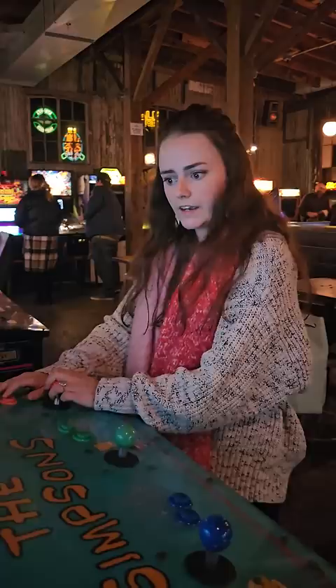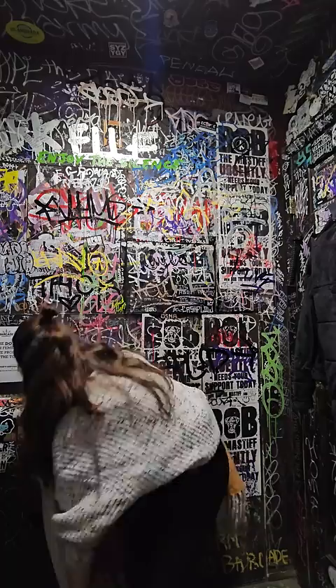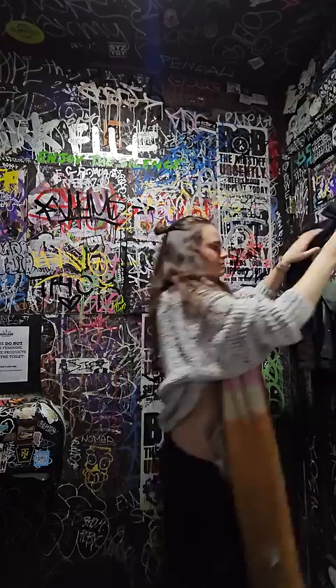You'll see me taking off my stoma dome, my protective stoma dome, and then grabbing some toilet paper, folding it up, and tucking it into my pants just to protect them.